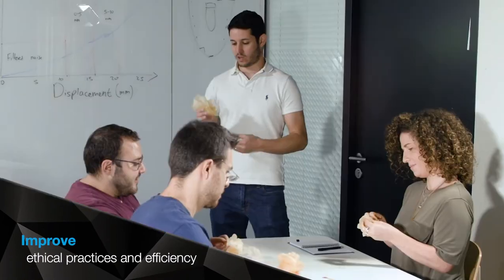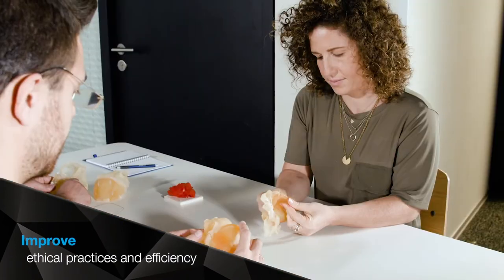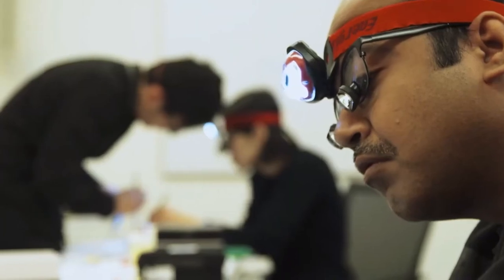Reduce the need for cadavers, clean rooms, sterilization of tools, biohazard risk, and other valuable resources.